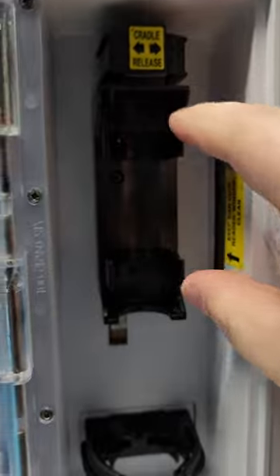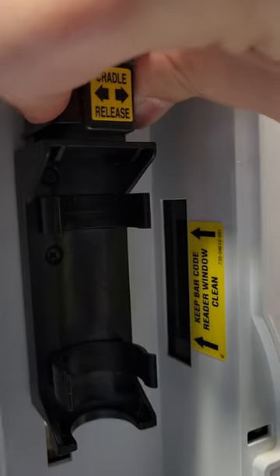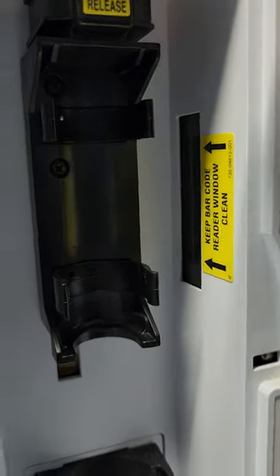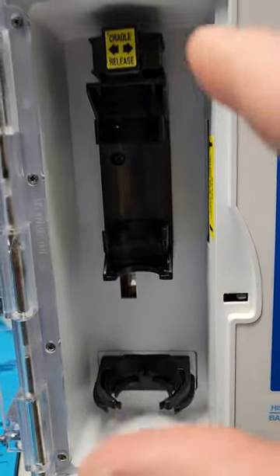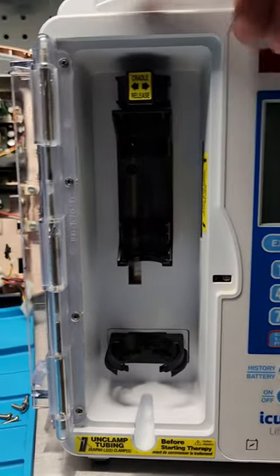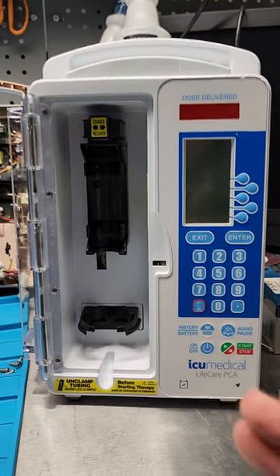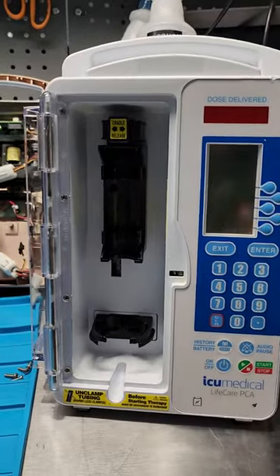This right here holds the vial, and there's one pin which is the vial detect. Right here is the barcode scanner. In its uppermost position, that's when it would activate and read the barcode. Down here is the plunger detect — this little tiny button on the back. It snaps in kind of vigorously; it doesn't feel good when you snap it in, it feels like it's going to break. The problem I'm having on this particular pump is that it is not detecting the mechanism in the uppermost position.